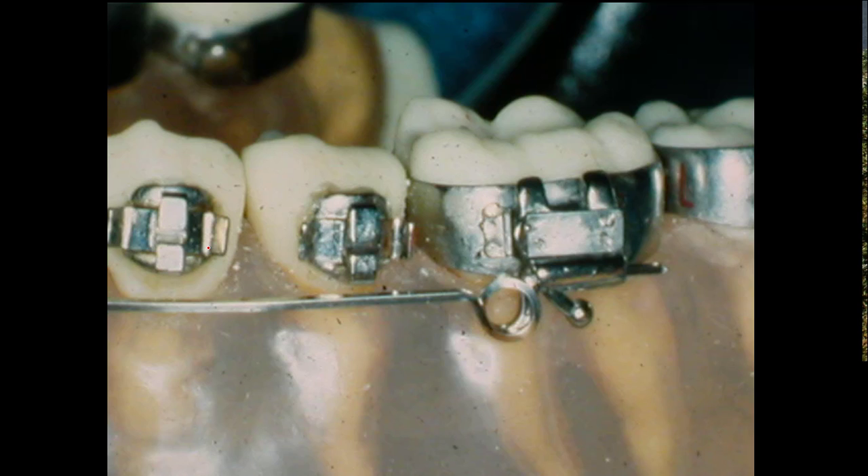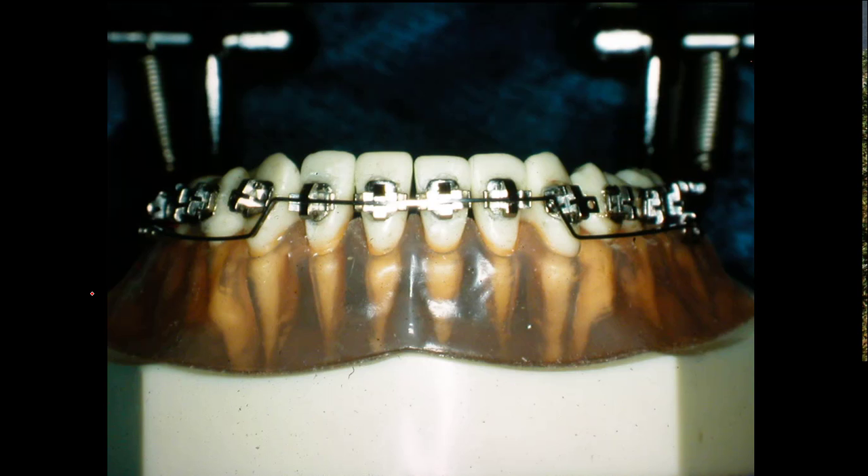This is just the intruding wire — it's exactly the same back at the back, but that segment in front has to go up to get into the teeth. There is a set of teeth without any arch wire in here, and you've got this torquing arch wire there. Normally we would have a regular arch wire — your small arch wire — and it would come on top over here and then go back into the brackets over there.